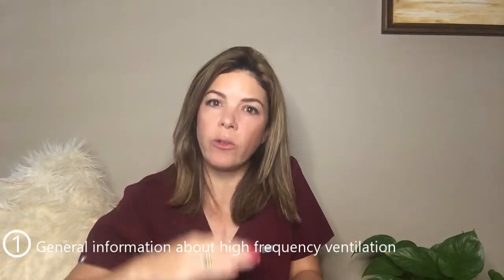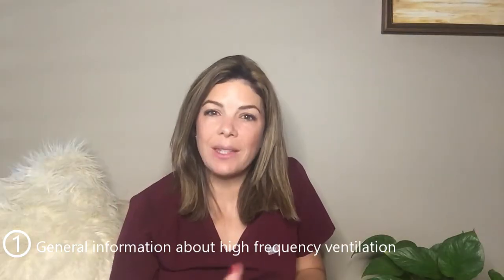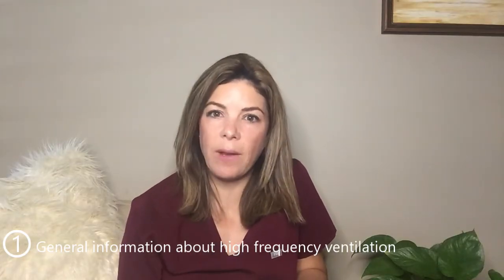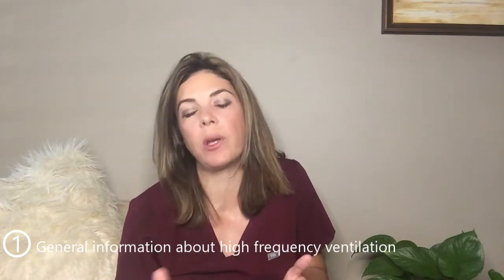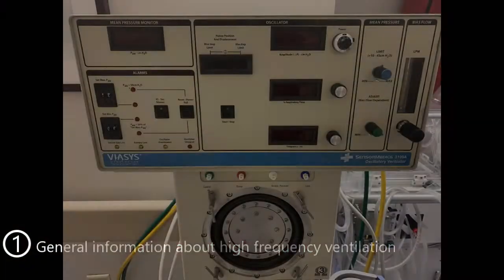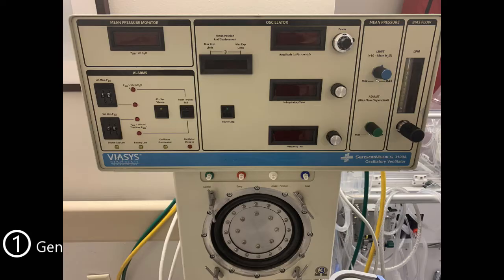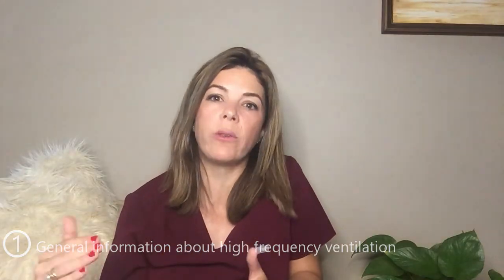With jets there is constant opening and closing of the lungs. Jets deliver pulses of gas into the trachea with active inspiration and passive expiration, as opposed to active inspiration and expiration with the oscillator. This talk is going to focus more on oscillators, and in the future I'll dedicate a whole separate video to jet ventilators.